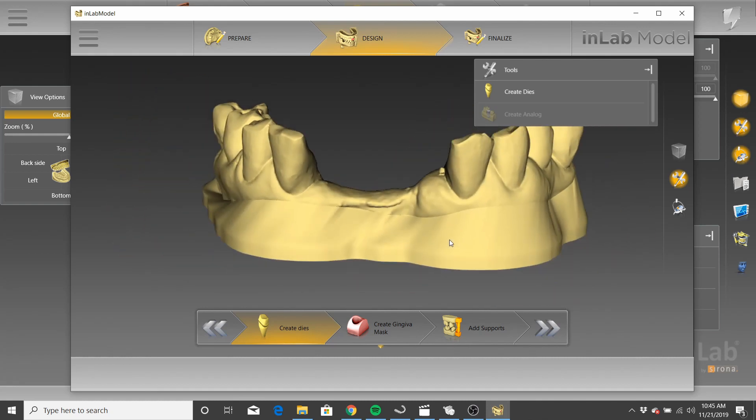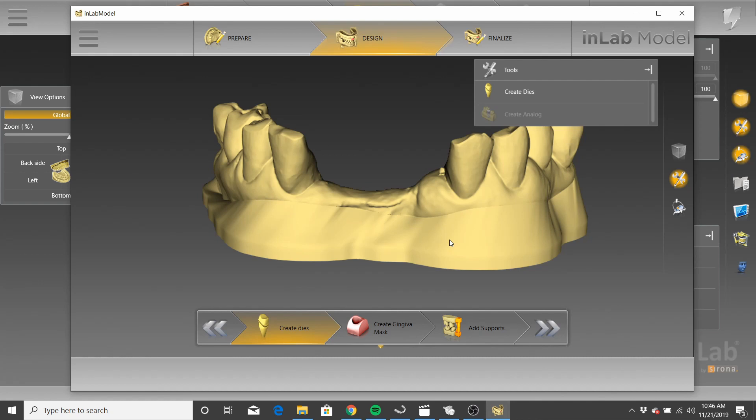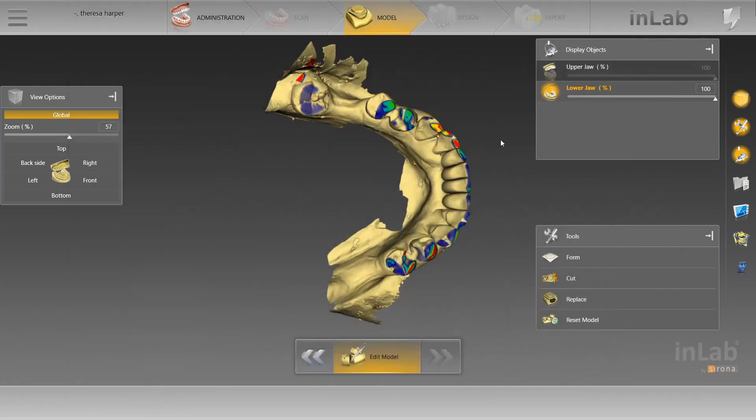So yes, it's easier to do a wax-up as a bridge after you've removed everything because it's easier to move around a pontic. However, you're going to have to do this whole workaround. Now, when you call them crowns, it's a bit more difficult, but you don't have to do the workaround. When you call them crowns, you're going to have to determine your emergence profile from the get, so you've got to get it right the first time. I prefer this workflow. What I do is I overlay the pre-op scan and I use the emergence of the previous teeth to determine my emergence or where I'm going to mark my margin. That's just my take on that. But if this happens, I'm going to show you what you have to do.